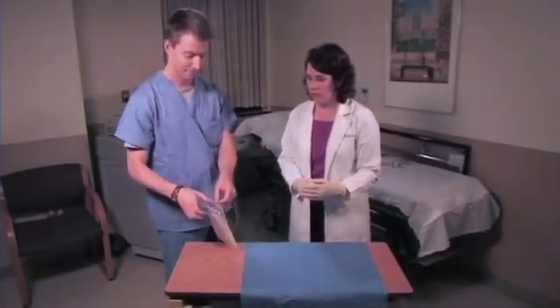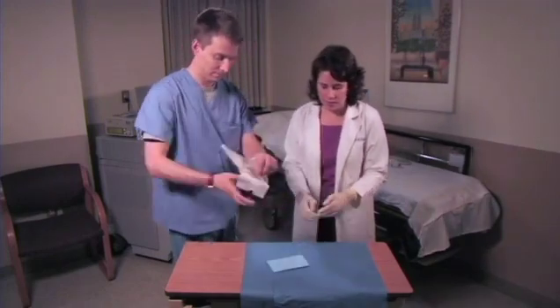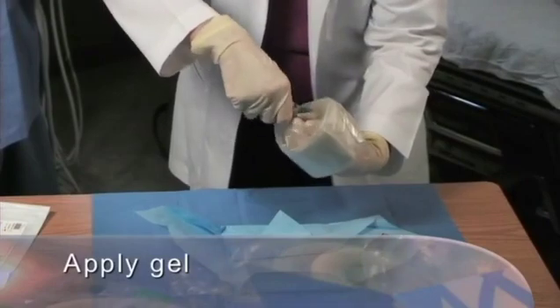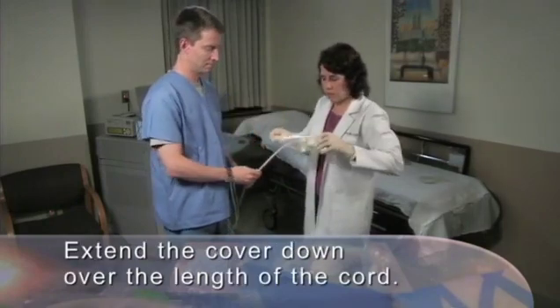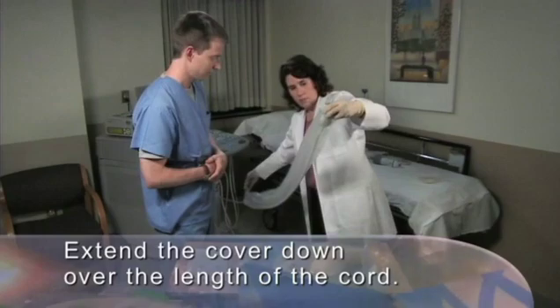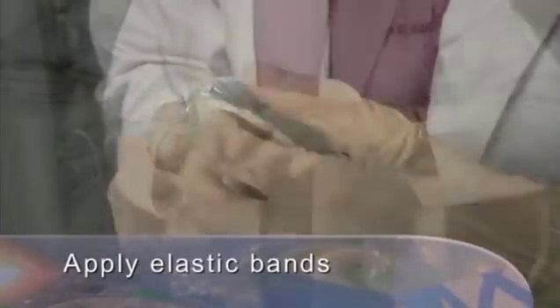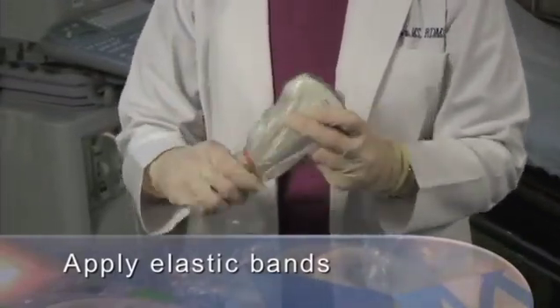Using the dual person approach to applying a general purpose transducer cover, the non-sterile person opens the procedure kit, placing it onto the sterile tray. The sterile person opens the sterile gel packet and creates an opening in the cover and applies gel. The non-sterile person places the transducer into the cover. The sterile person then extends the cover down over the length of the cord, ensuring proper sterile technique. Check carefully and remove any air bubbles between the transducer face and the cover. While remaining in the sterile field, apply enclosed sterile elastic bands to secure the cover in place.